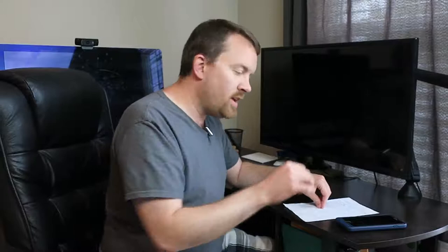And so what I've got here is a recipe that is handwritten. Now I have a CCTV that I possibly could use to kind of put this under. The problem is it's handwritten, so sometimes handwriting can be a little bit hard to read. Secondly, I could use something like Seeing AI, but Seeing AI isn't perfect, at least not yet anyway, and so it doesn't always pick up everything I want. But you know what? Aira can do this for me.